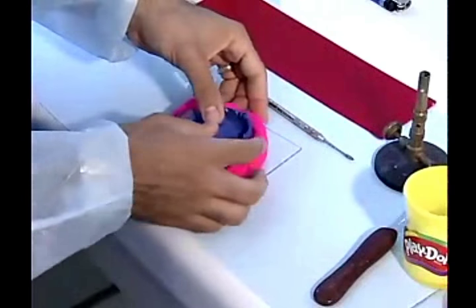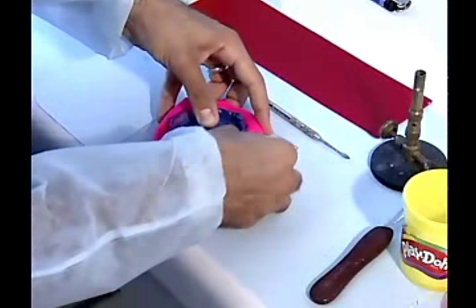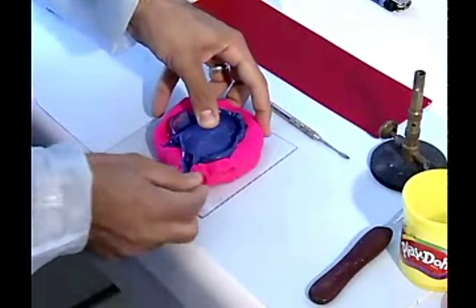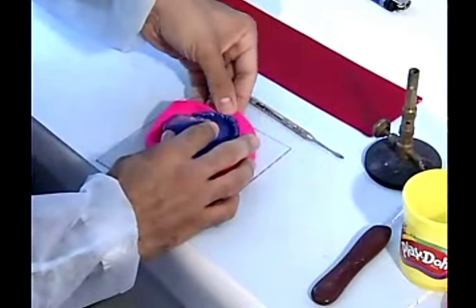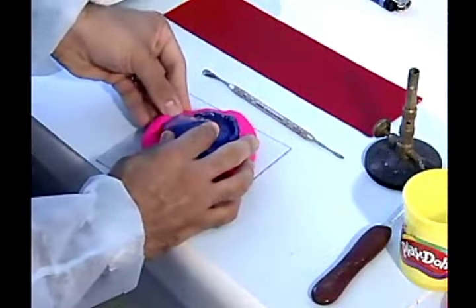Place the final impression into this concavity. Try to seal around the impression using a wet finger. About 2 to 3 mm of the impression borders should be visible, superior to the Play-Doh, and all the tissue surface should be Play-Doh-free.